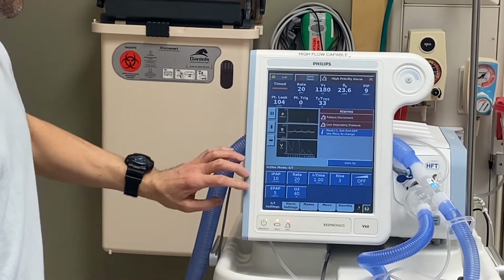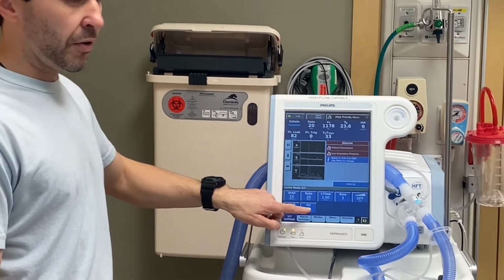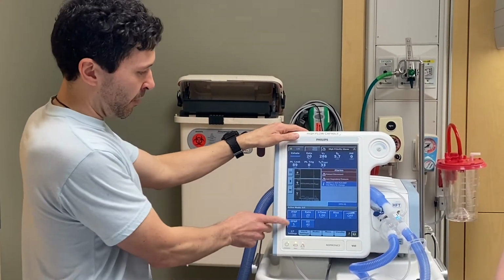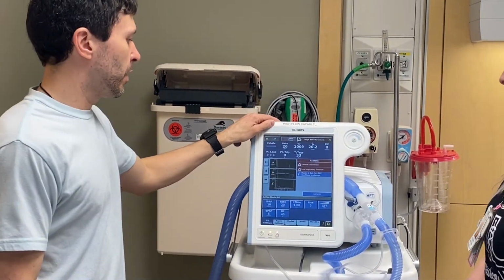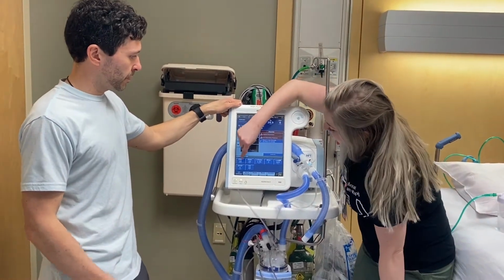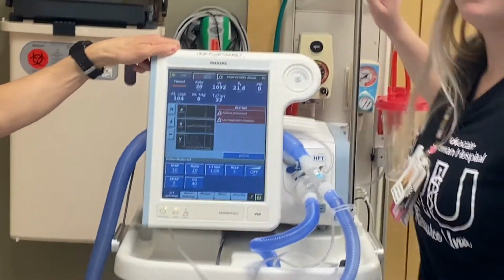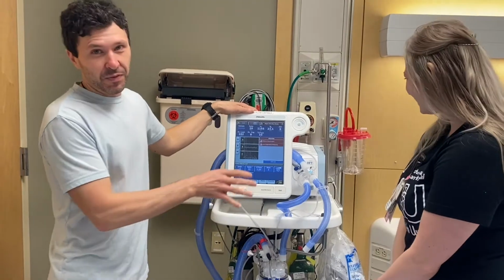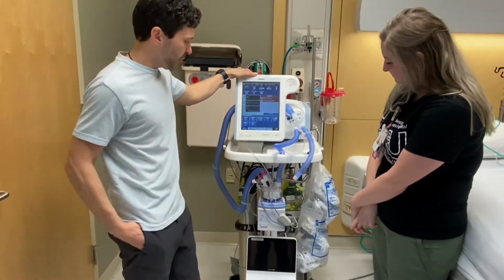You're good to go. Your IPAP and EPAP do not play in any regard to your FiO2. Think of the OptiFlow. You can have these at whatever you want, and this can be whatever you want as well. It's not like the Venturi mask. So to make clear for nursing, what can nursing touch? No, no, no, no, no, no, yes. That's it.